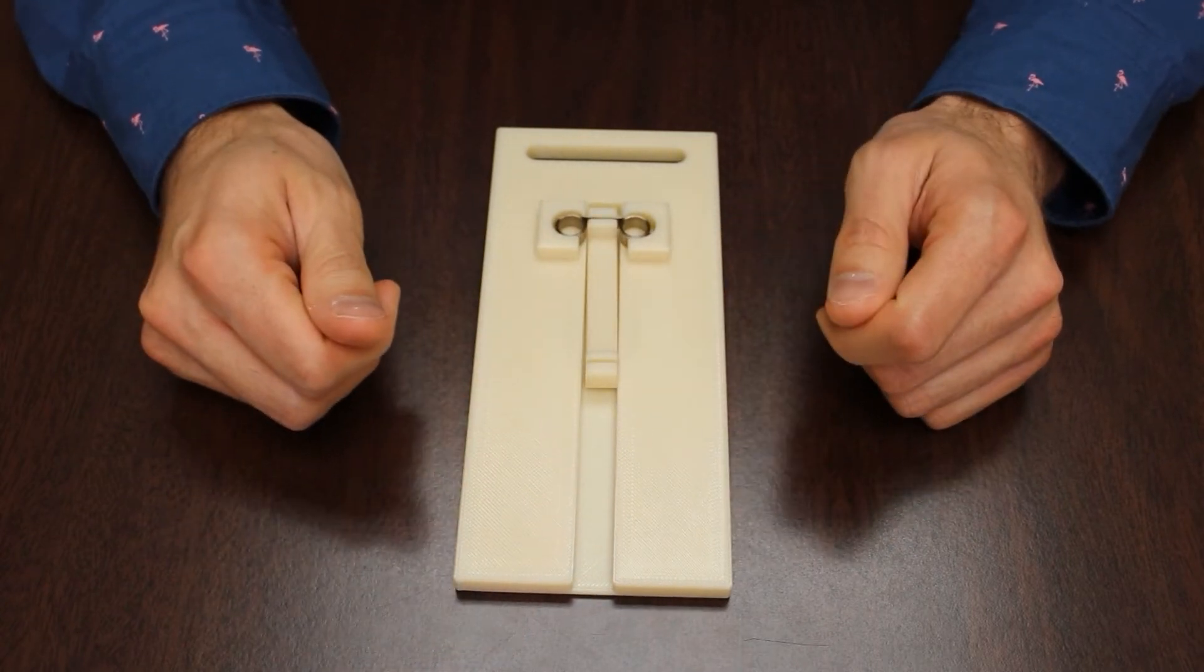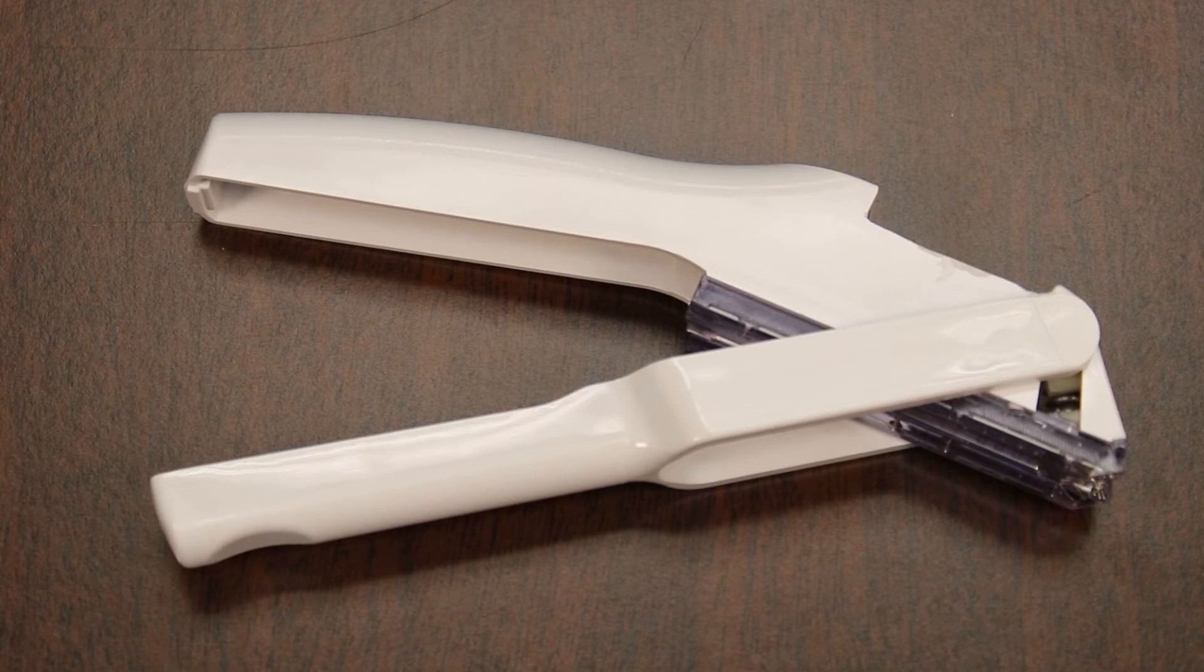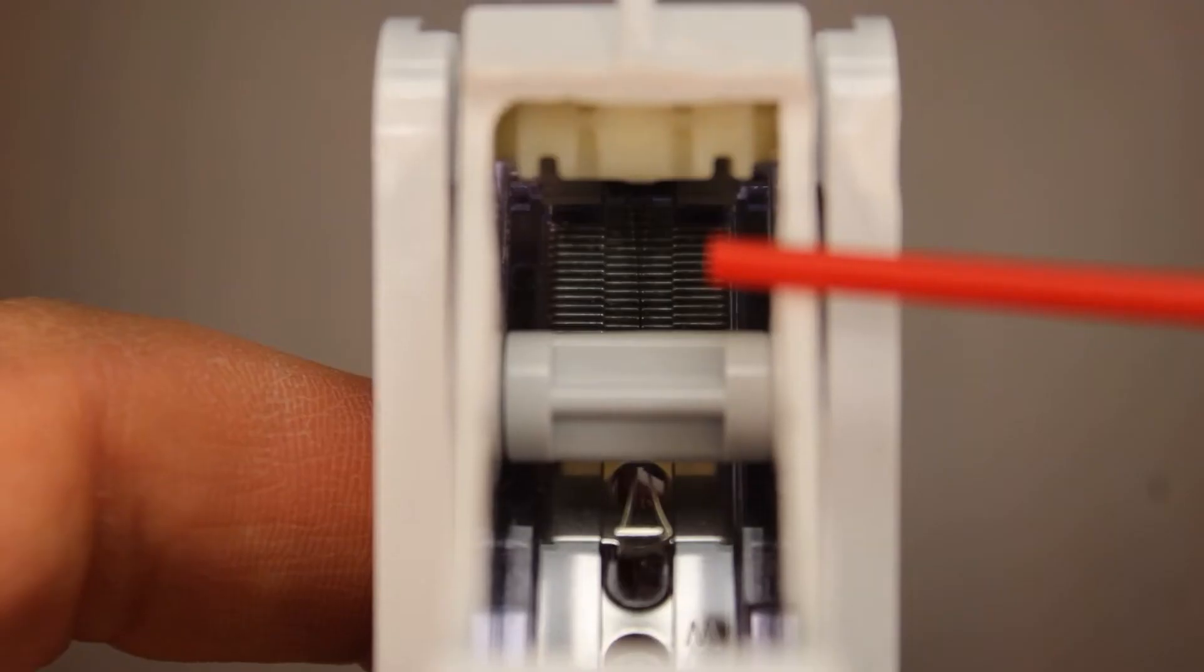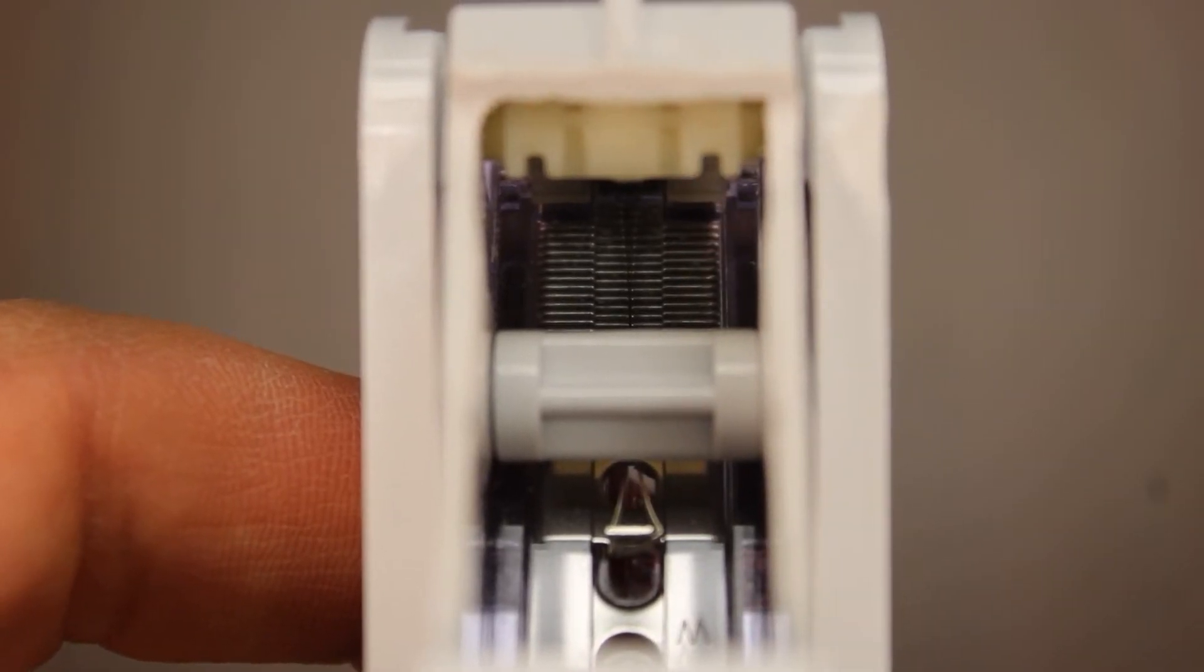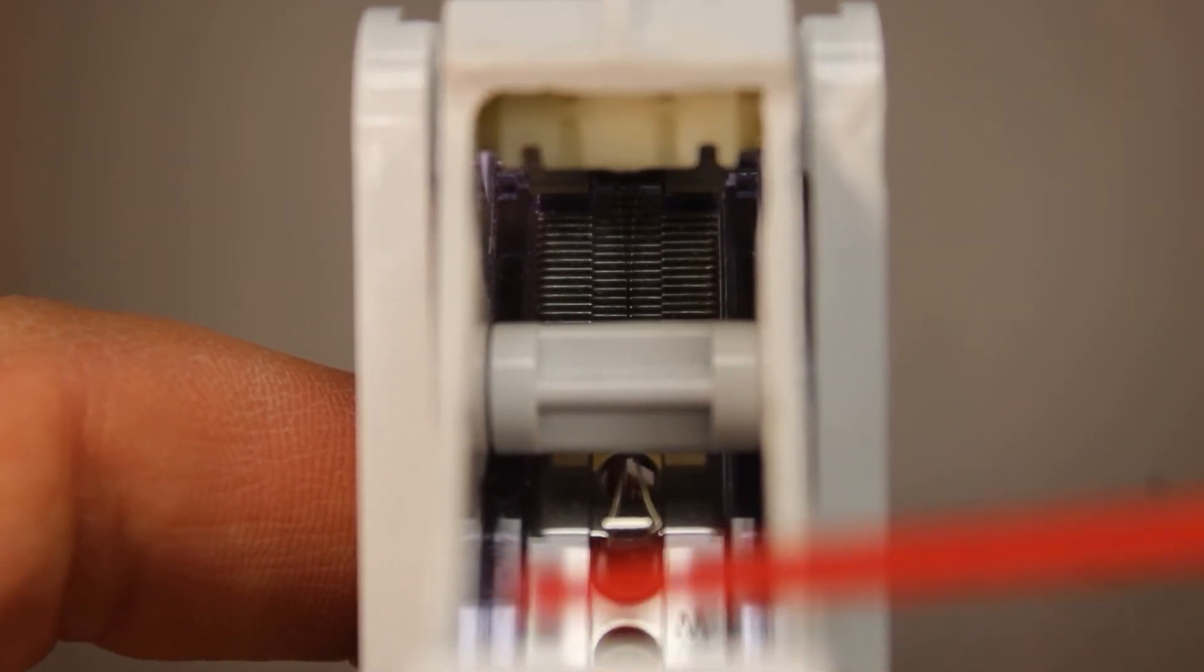Now in a surgical stapler, we can look through this window in the top of the device to see the row of staples beneath the white pin. This twin spring, unlike the last one we viewed, is incredibly thin and narrow. Here, the saddle is hooked over this tab.